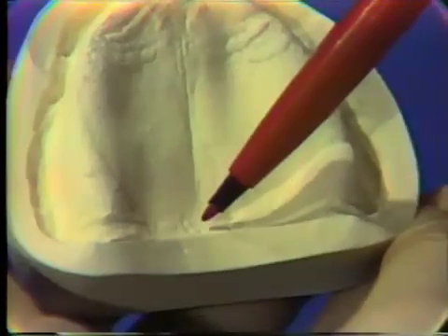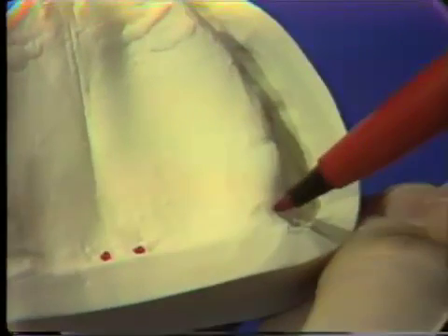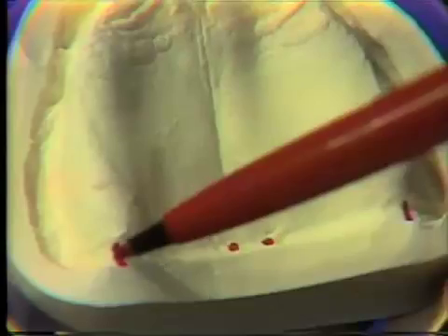Those structures, as you know, are the fovea palatine close to the midline and the hamular notch area located on either side of the posterior border.